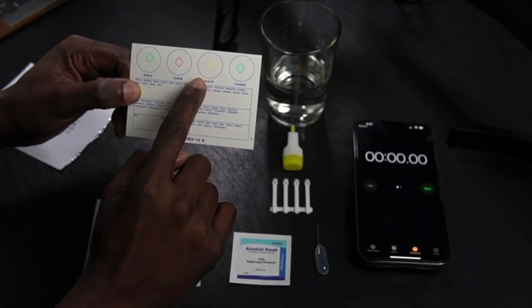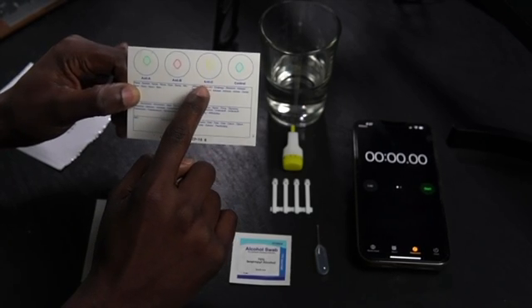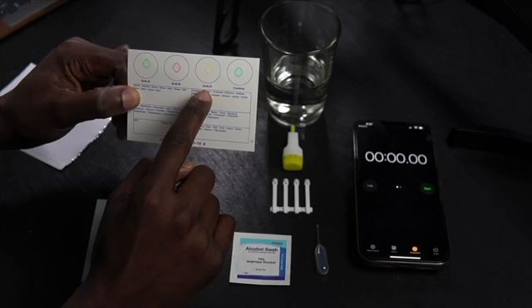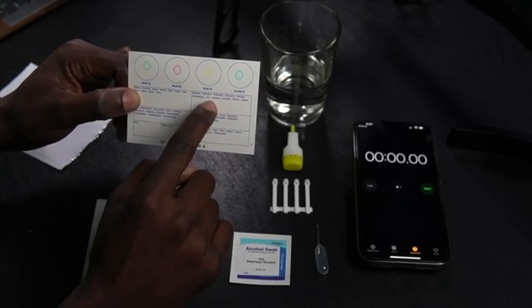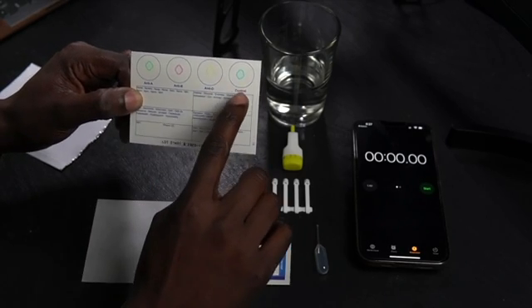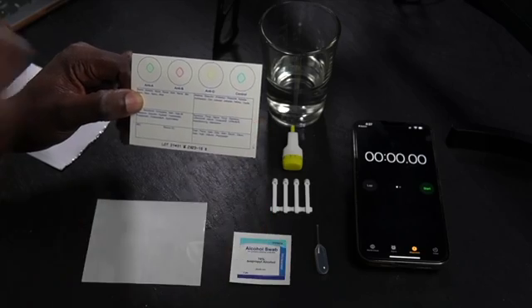Now if you see any agglutination in the anti-D circle, then that person is RHD positive, RH positive. And lastly, you shouldn't see any agglutination in the control circle. If there's agglutination there, you did something wrong or there was some cross-contamination, the test is all messed up. Get rid of it and do it again.